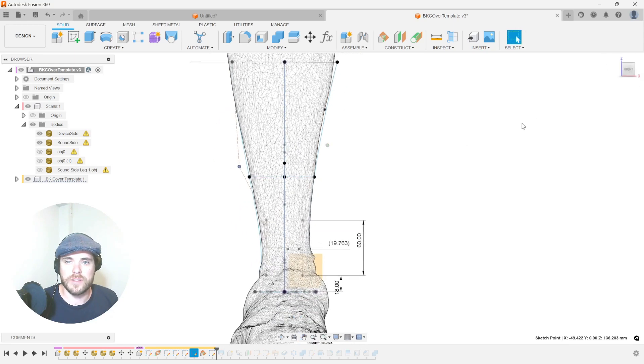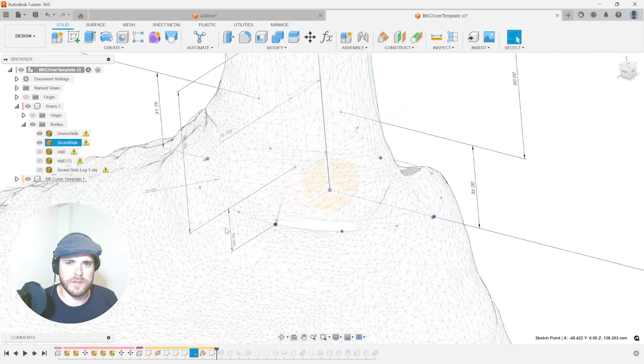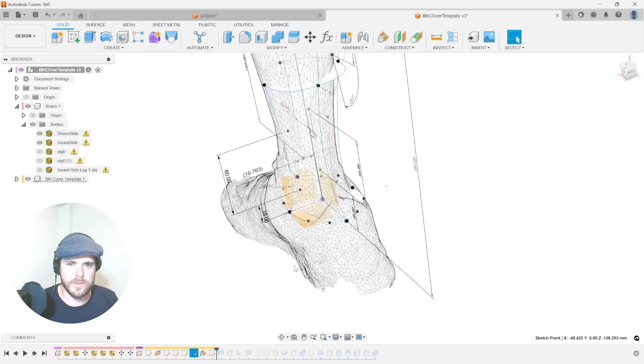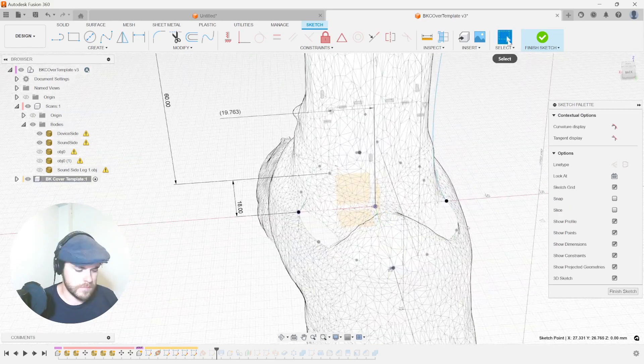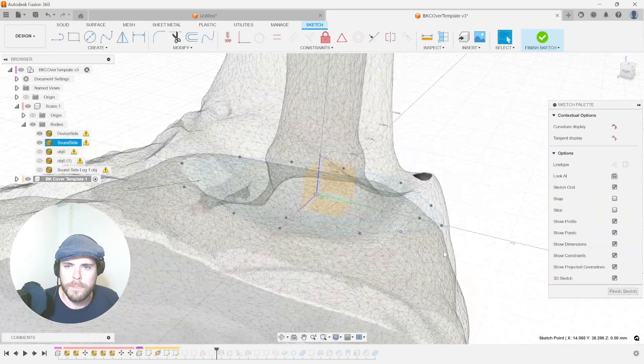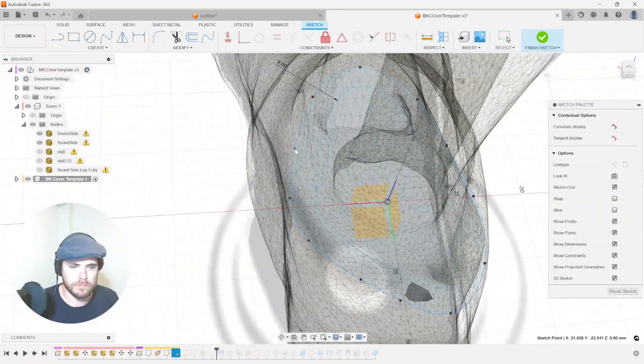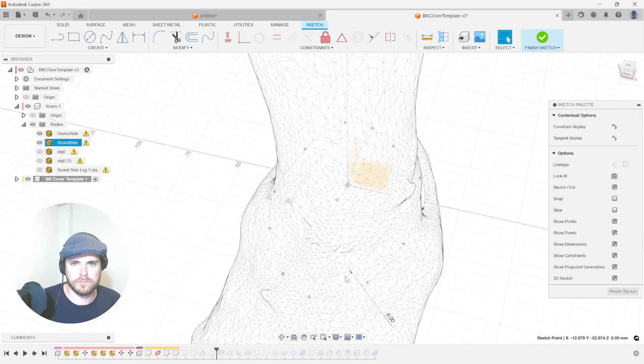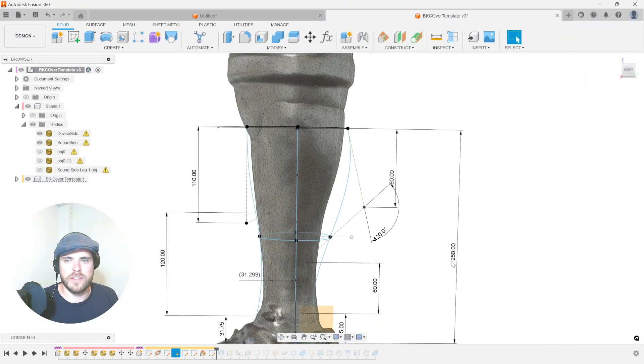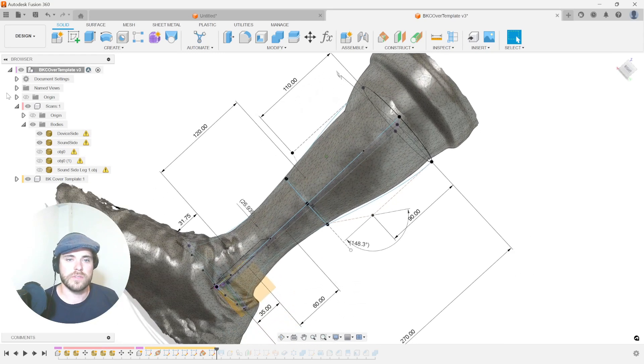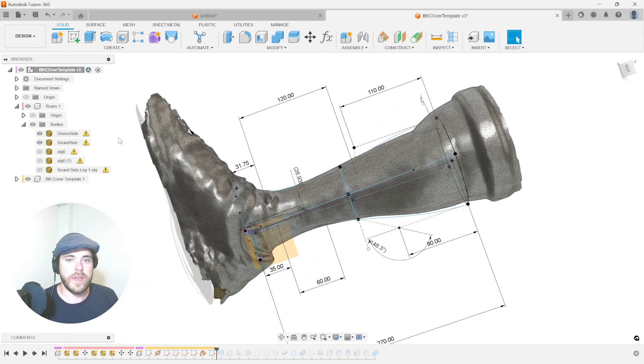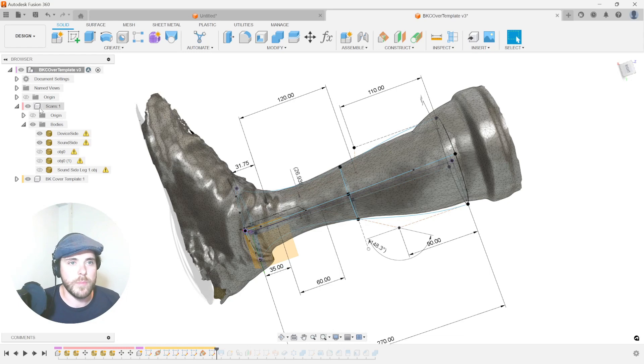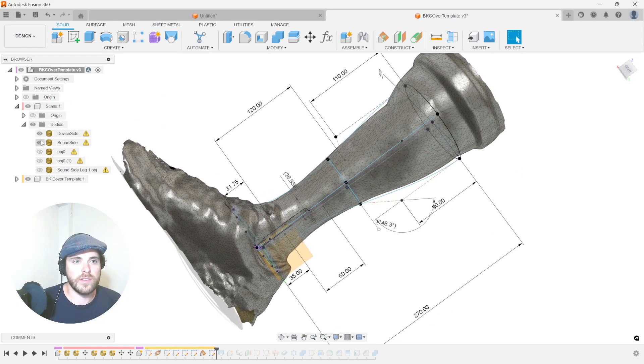Let's look at the foot shell now. Let's move this foot shell around to match our design. We can now change the height of the device. So spending two minutes, we've now mapped everything with the sketches and the frame of our template so that everything is in place.